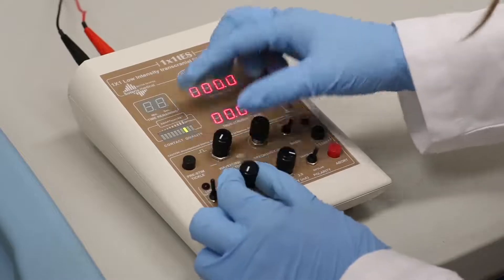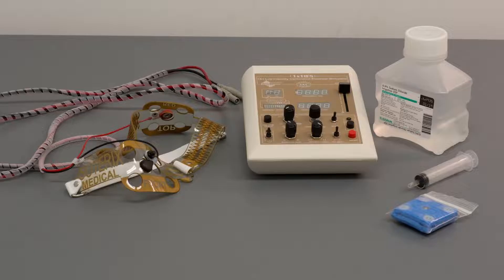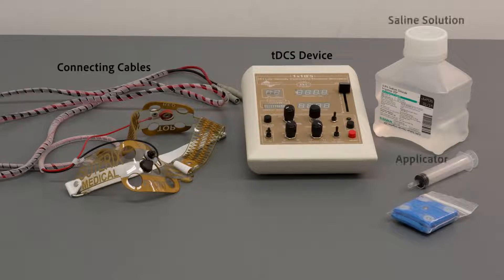While some materials will depend on the specific protocol of the study or treatment, there are basic items that are general across modern TDCS applications. Prior to the TDCS session, make sure all necessary materials are handy.